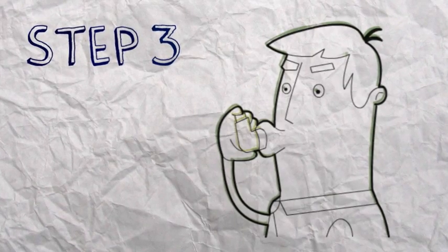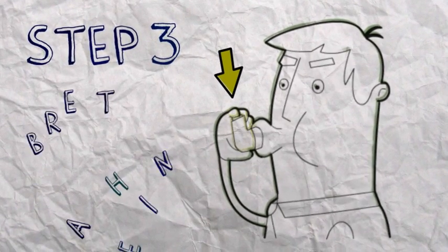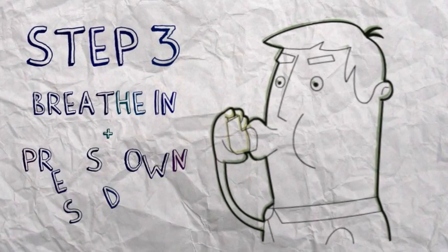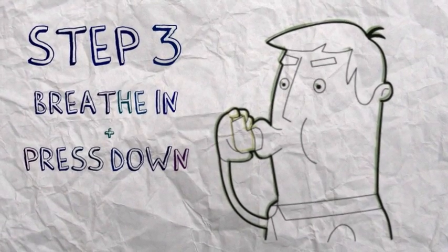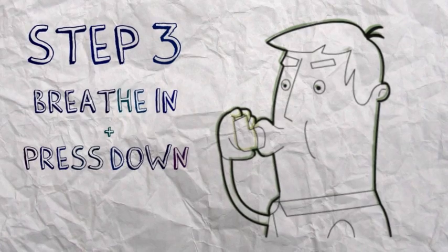Step 3. Start to breathe in slowly and at the same time press down on the canister. This releases a spray of medication. Continue to breathe in slowly and deeply, drawing the spray into your lungs.